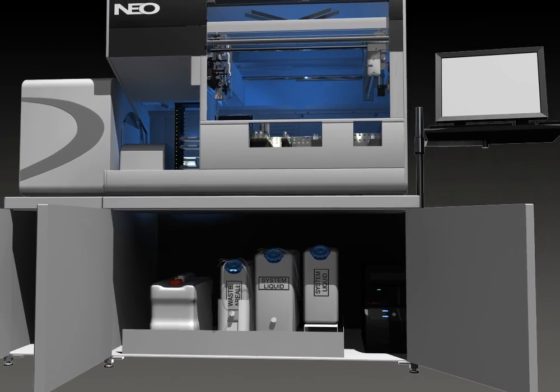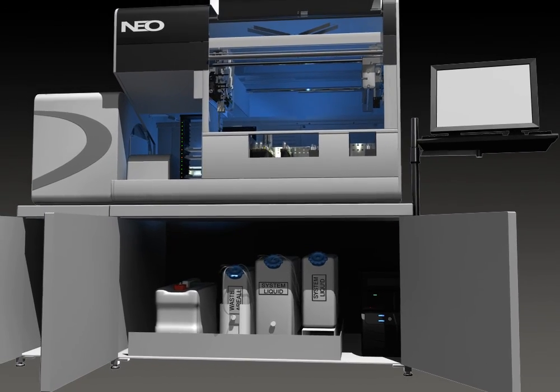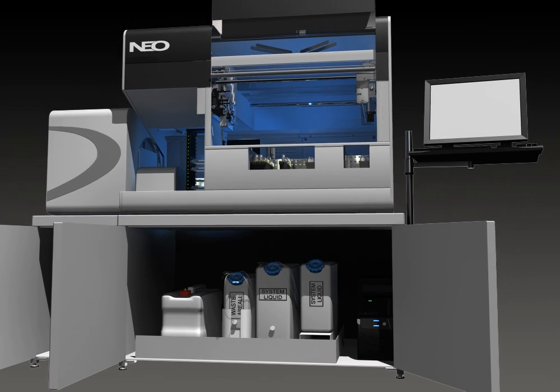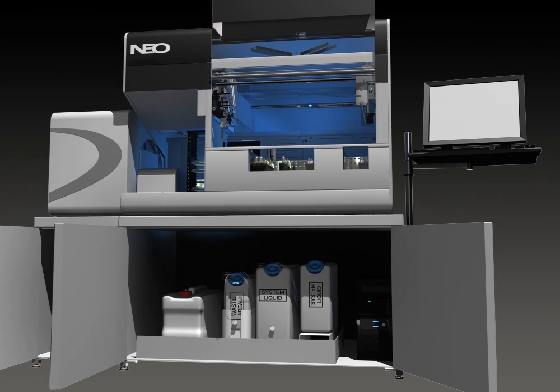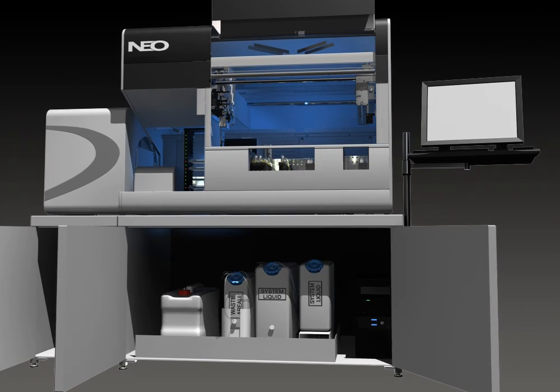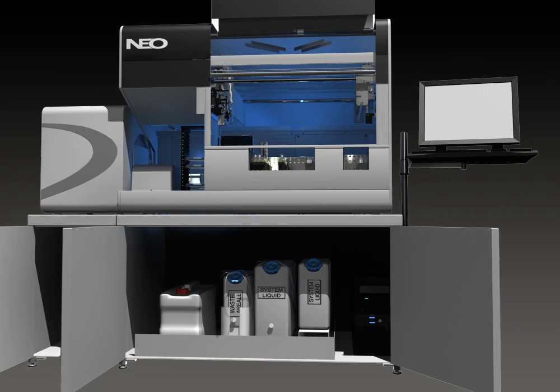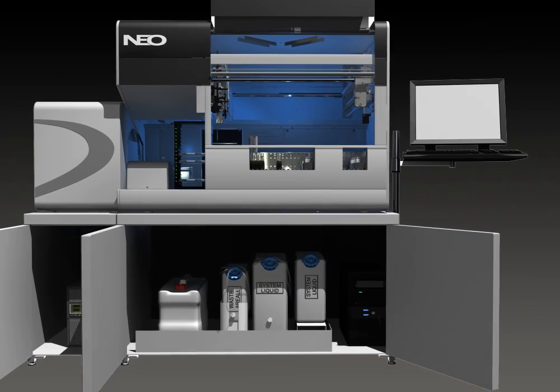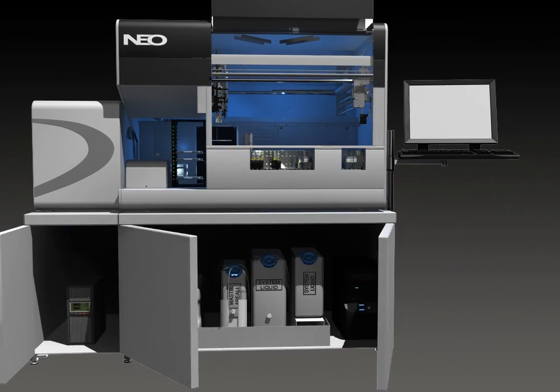Again, this is true continuous access giving you the highest level of productivity. NEO's cart also houses the instrument computer which has a DVD drive for archiving test results and a UPS for backup power supply.